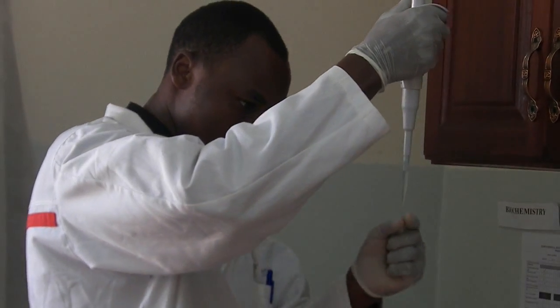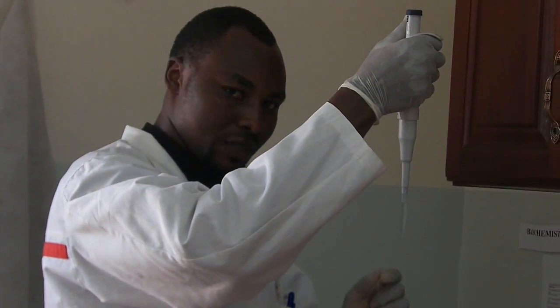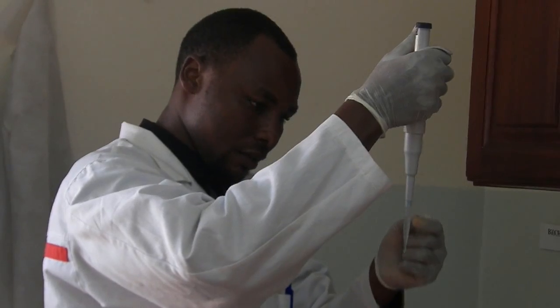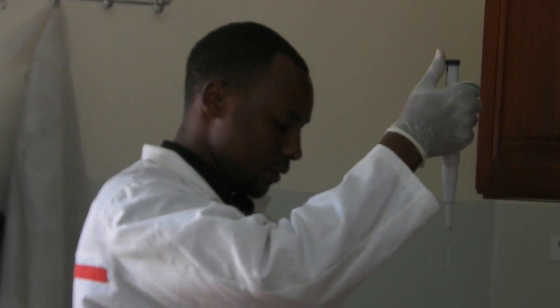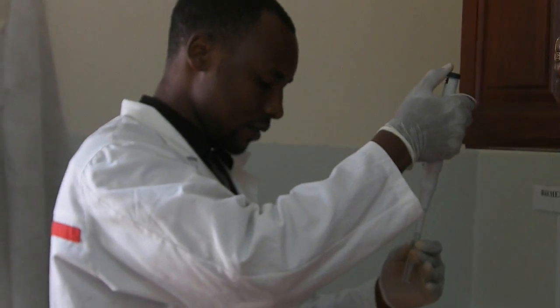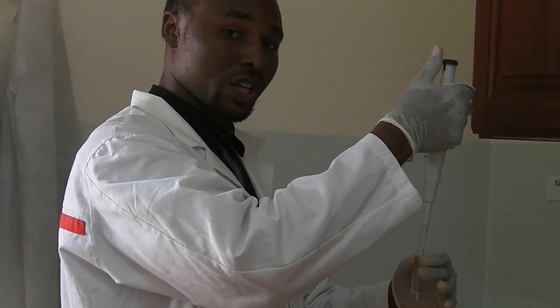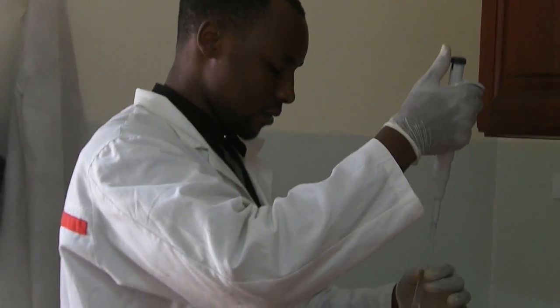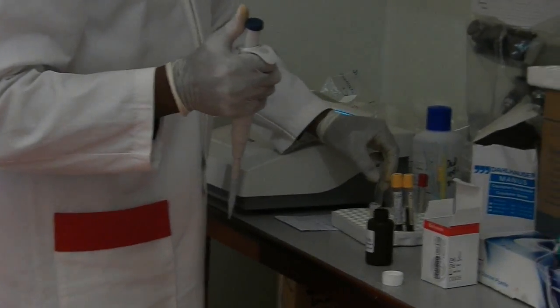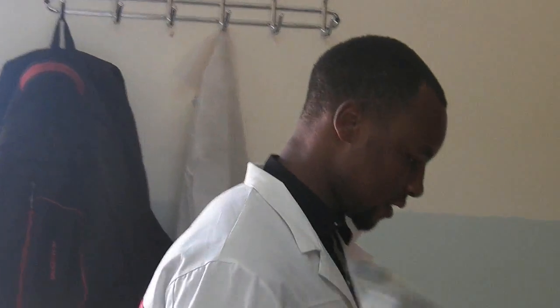Make sure there is no gap at the bottom. If there is a gap, it means you didn't pipette the entire amount. Transfer very carefully. Then discard the tip wherever you can discard.